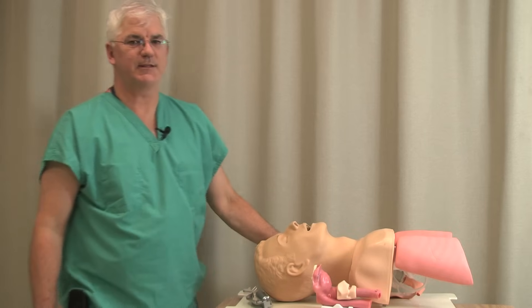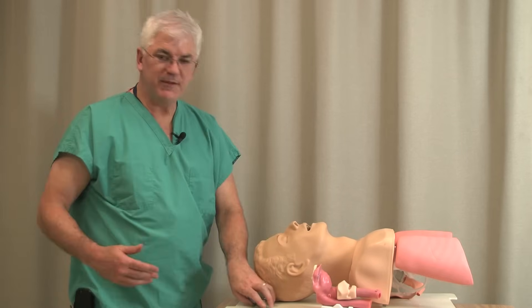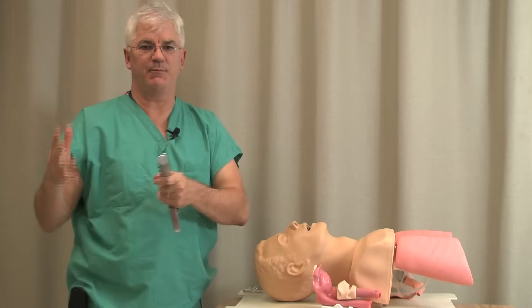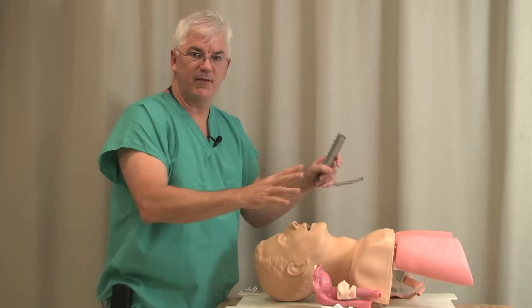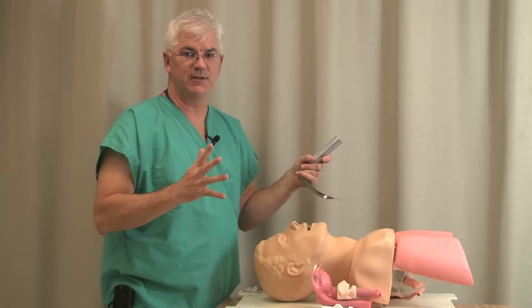This is the lesson on direct laryngoscopy for the MICU airway management class. This is the big thrilling moment we're all interested in. We talked about airway evaluation, we talked about being prepared, about the medications and stuff. We've masked, we've done everything, we have everything ready. So now let's talk about what makes for a successful intubation.